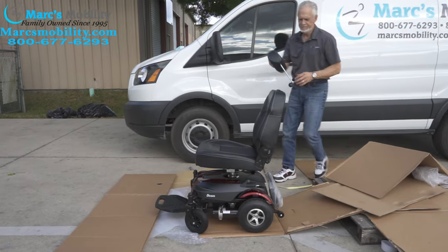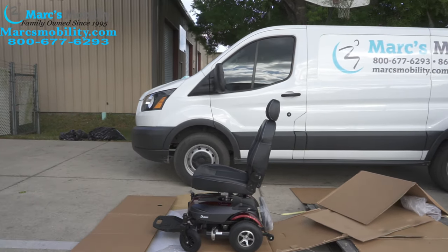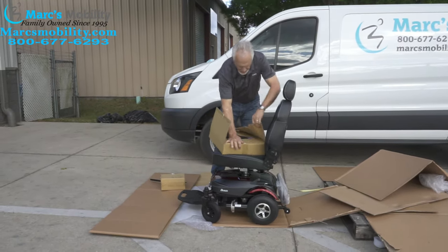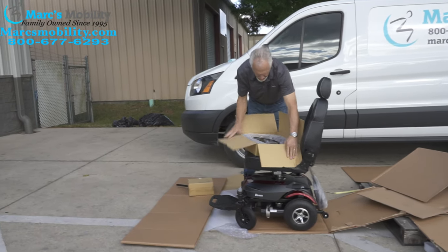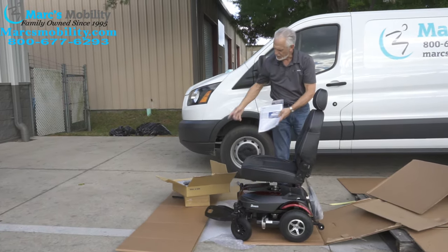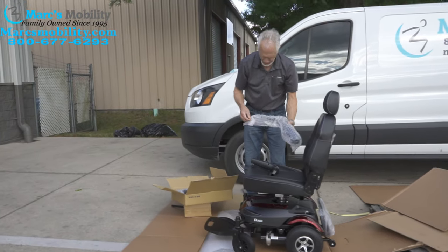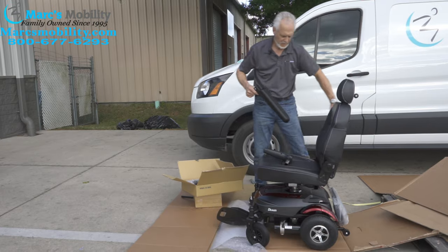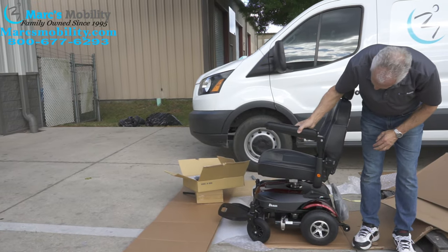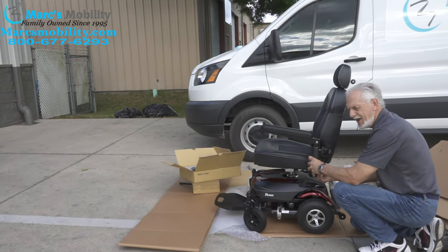We're going to put the headrest on. Now the next thing we have is our arms. The owner's manual is inside the box with the arms — so your owner's manual is with the arms. I'm going to put that in the back of the seat. Take your arms — these are two-piece arms. Take them out and put this piece under here, then put this in here. You can see how loose that is; there's a knob under here.